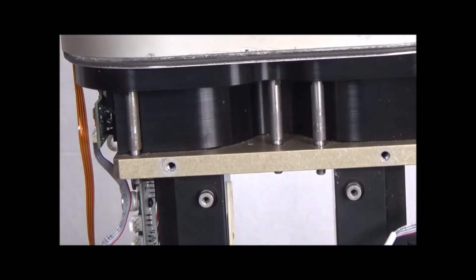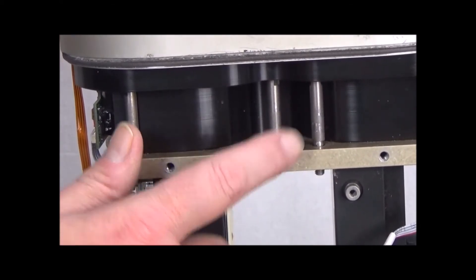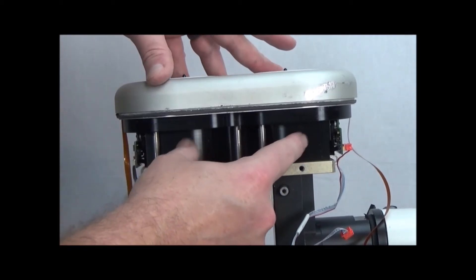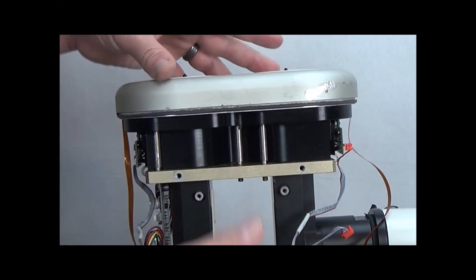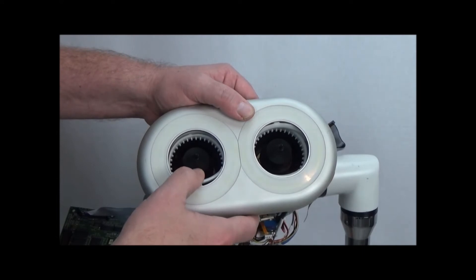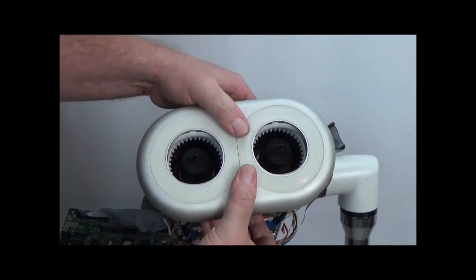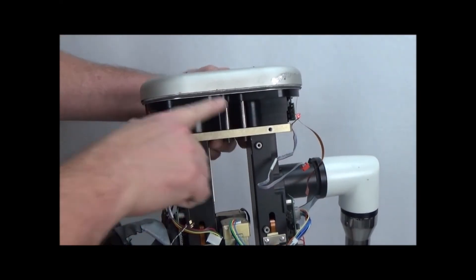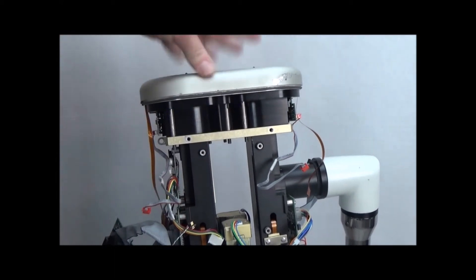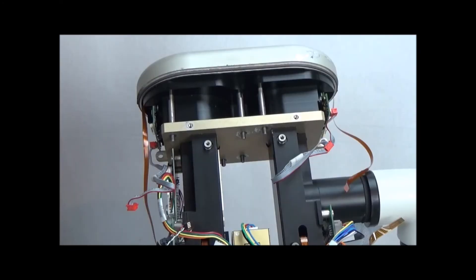One thing I want you to notice: the posts are not fully seated back down to this bracket. The reason is the silver end cap is not fully seated down onto the black plastic piece. The flex rings here are caught up inside a little bit. Center them a tiny bit and that will allow us to drop the end cap a little more so that you can see we are now fully seated. Now reattach the six nuts.